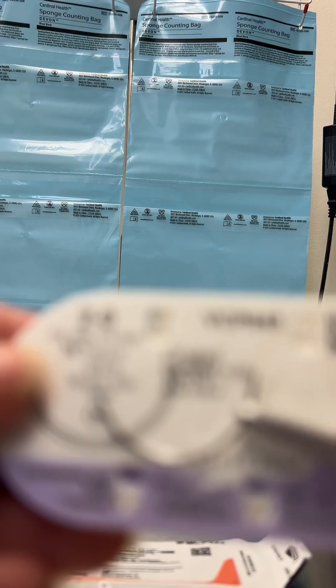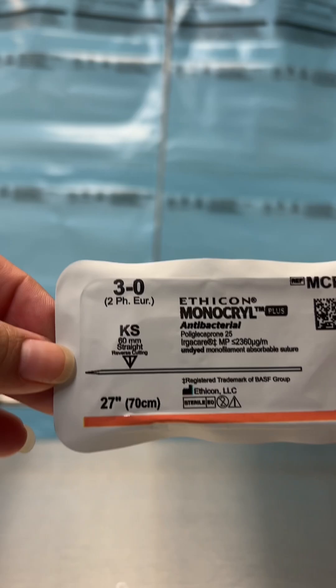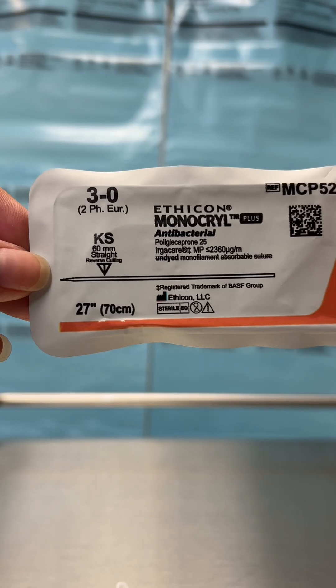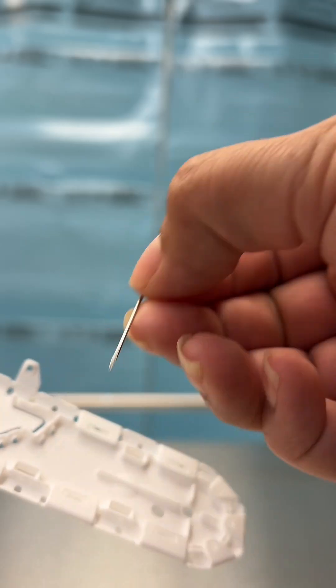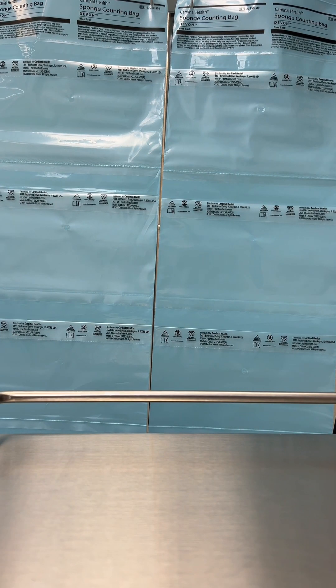Here you can see that a needle printed on the package is its actual size. And here's a Keith straight needle. This is similar to a sewing needle. It's a straight needle used for skin closure.